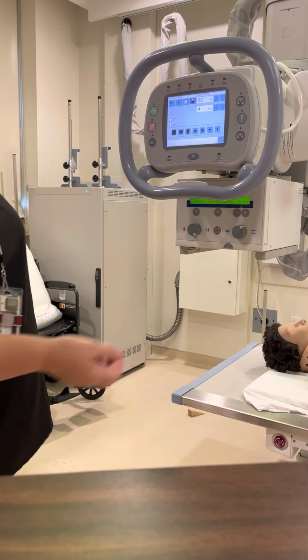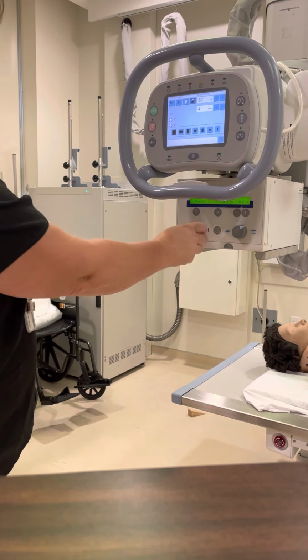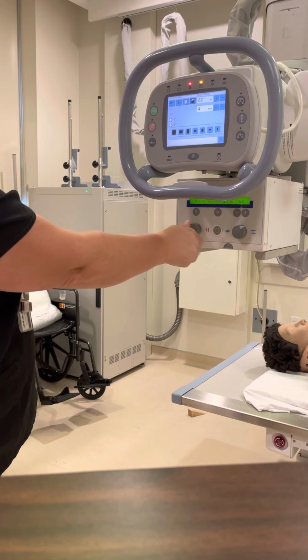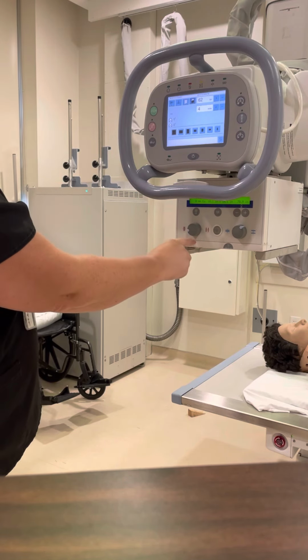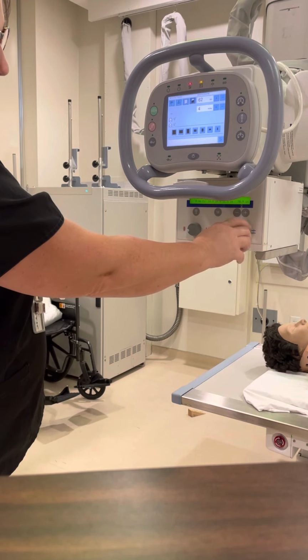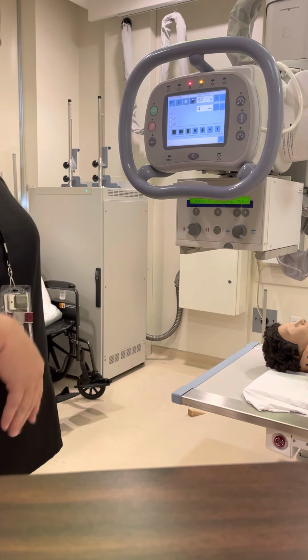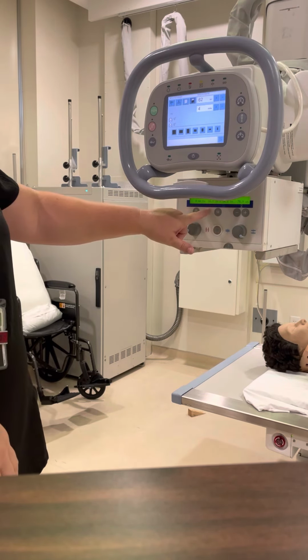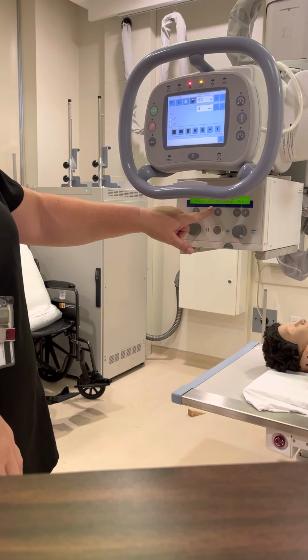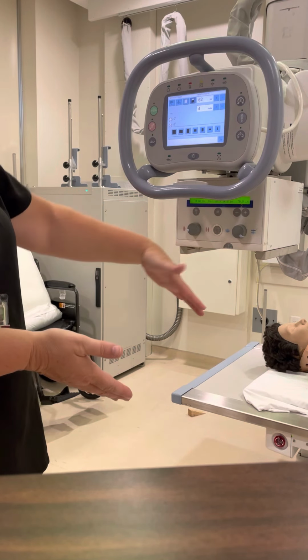So if we have a 14 by 17 cassette and we have it lengthwise, the first thing, this is our length. So we're going to open it as long as it'll go. And on this machine, it's a 16.1. And then if we're going to set the width of it, it's going to be a 14-inch width. And then we can actually mess with that and get it right at 14. Or we do allow that 0.5 above or below. So right now it reads 16, because that's the length of our cassette, by 14-inch, because that's the width of it side to side, okay?